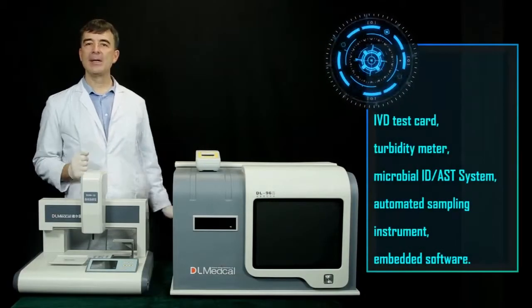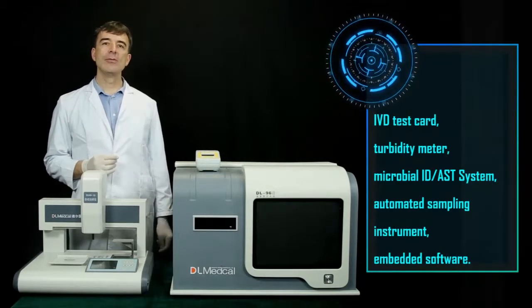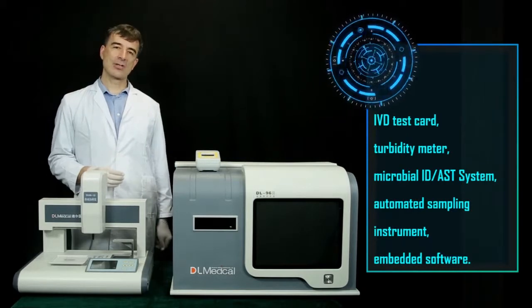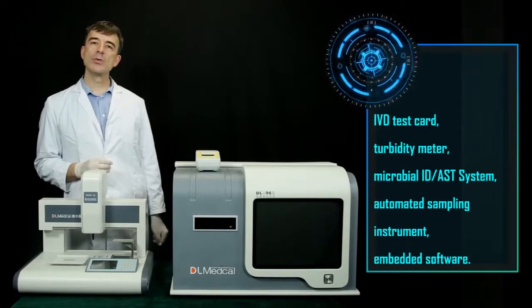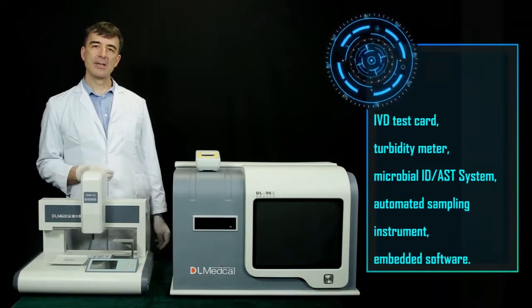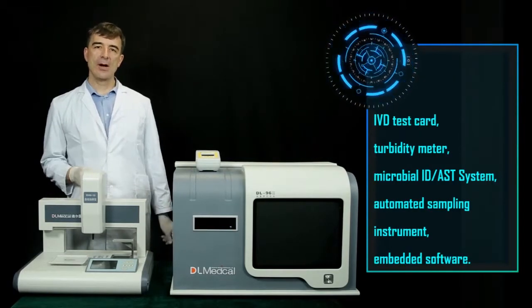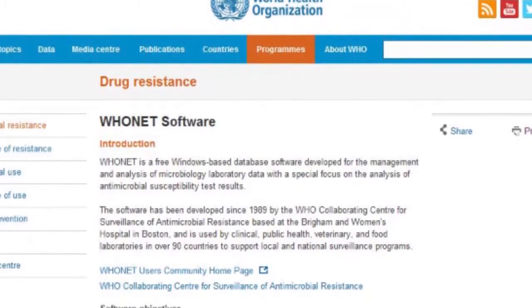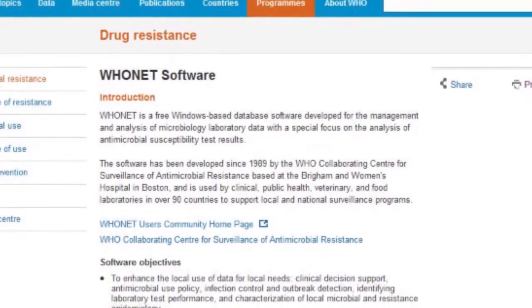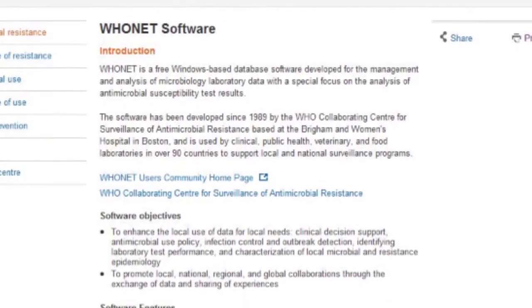The whole system is composed of IVD test card, turbidity meter, Microbial ID AST system, automated sampling instrument, and embedded software. The software also includes an expert analysis system, so the user can choose antibiotics optimization and drug sensitivity test reports to prevent abuse of antibiotics. The system can connect to WHO-NET software. The testing result can be shifted to WHO-NET software. Also, it can connect to the hospital LAN for data sharing.